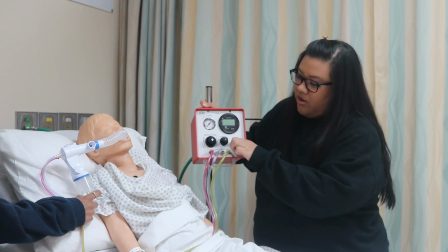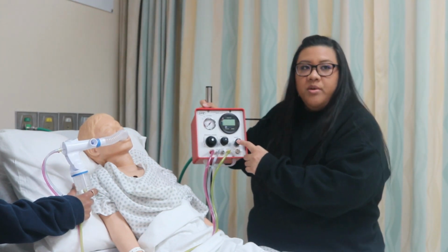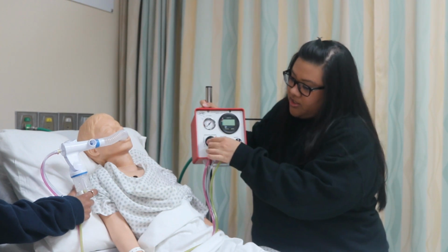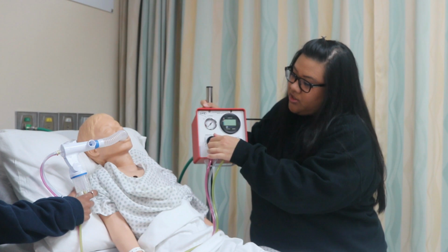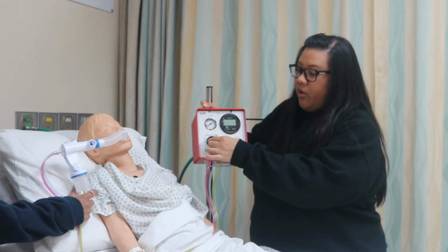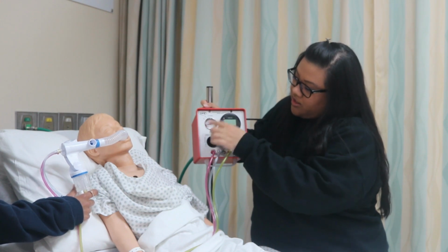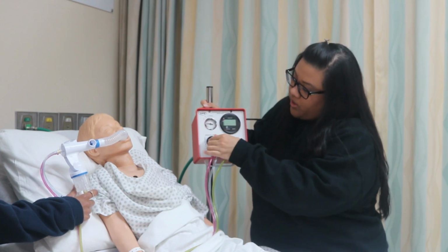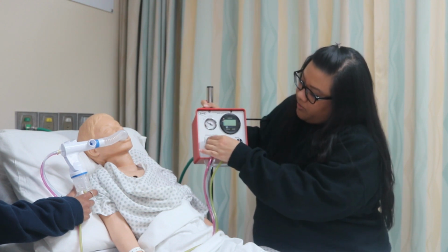We're going to turn the knob from off to on here. And then from here, we're going to adjust the operational pressure. So you want the aneroid gauge here to be between 30 and 40 psi. So I'm going to turn the knob to the right. And as you can see, the gauge here is flickering, and you want to keep turning it until it's between 30 and 40 psi.